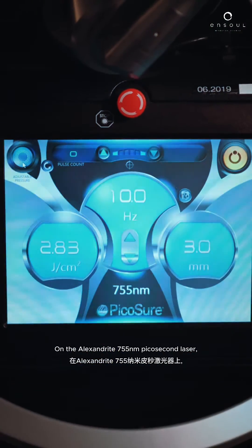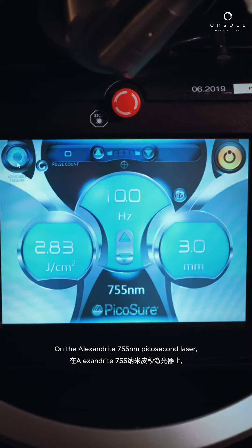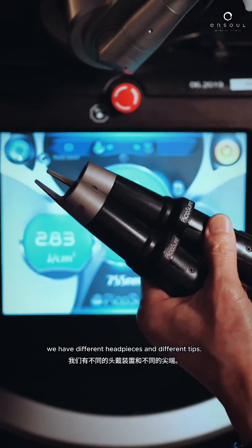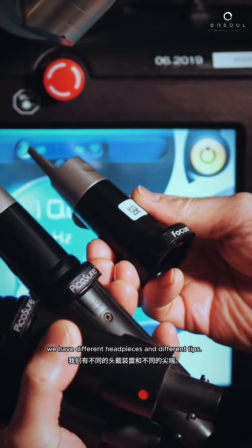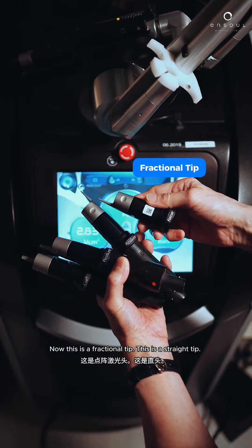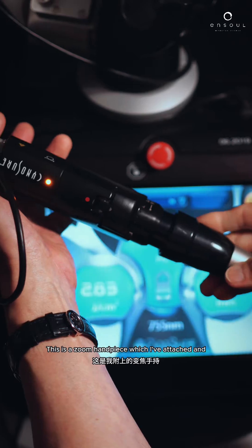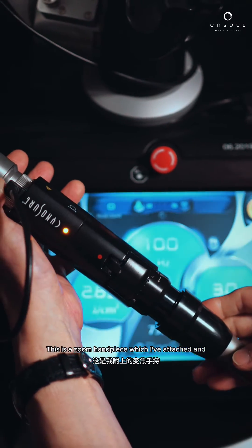On the Alexandrite 755 nanometer picosecond laser, we have different handpieces and different tips. This is a fractional tip, this is a straight tip, and this is the zoom handpiece which I've attached.